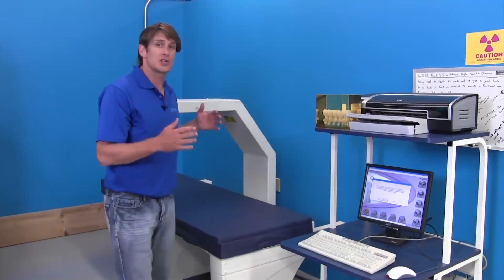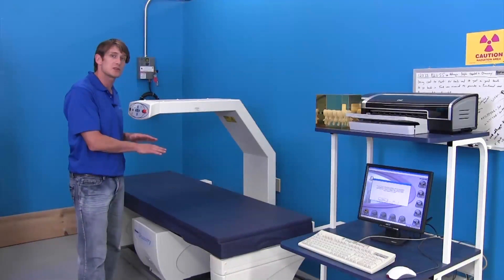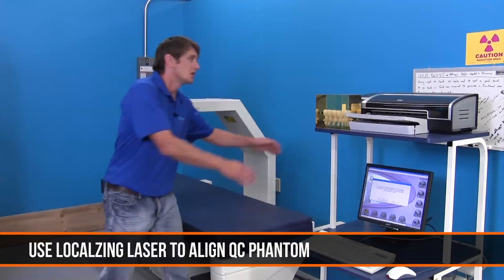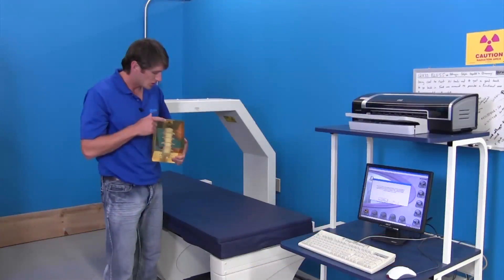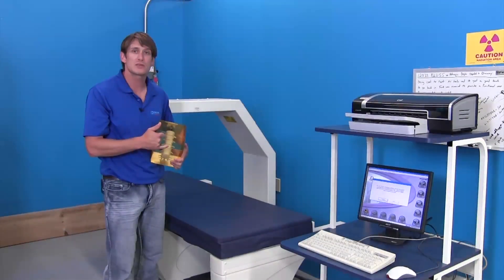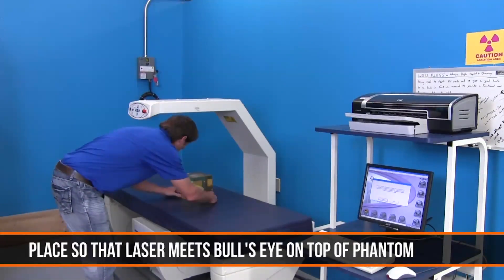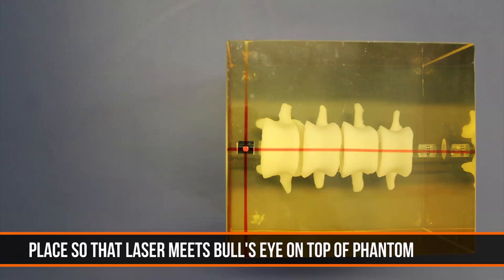By doing this, it should pull the table and arm into a starting position. From that point, you need to use the localizing laser to align your system Phantom properly. You're looking for the bullseye within the Phantom and through the numbers on the other side. Align this Phantom so that the crosshair goes through the bullseye and also runs through the numbers and letters of the Phantom.